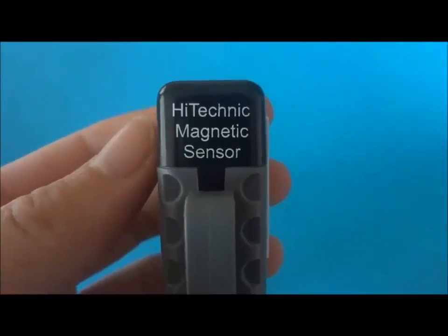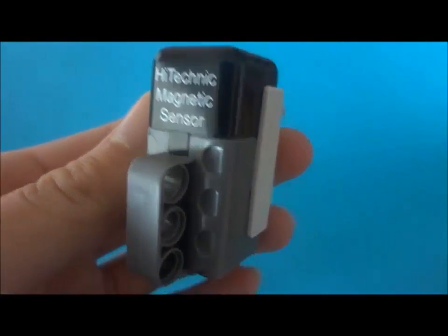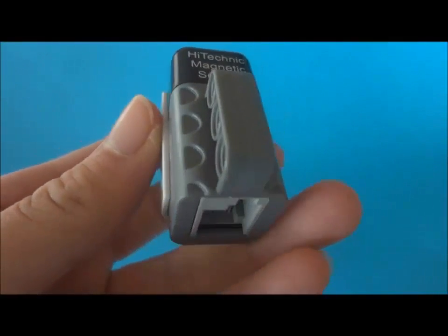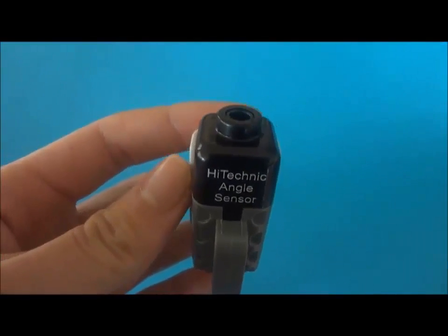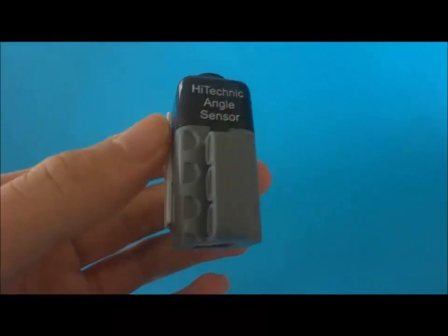One university project I heard about used a magnet glued to the person's tongue to control some equipment. I have avoided any use of a sensor on the mouth or chin area, because I think this would interfere with the person eating and speaking. I could have used a sensor that measures rotation, but this would have meant the complication of levers or gears, and I thought simplicity was better.